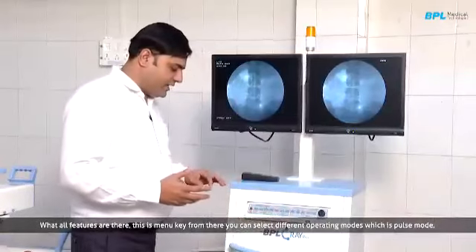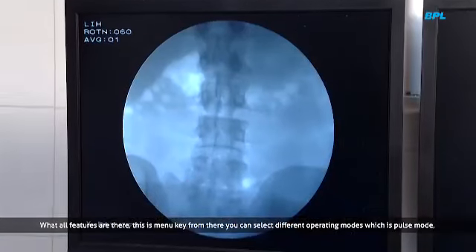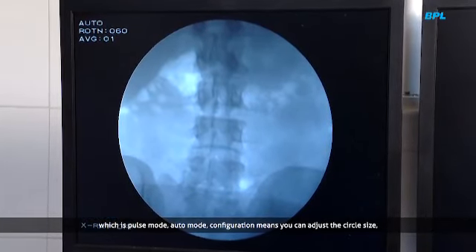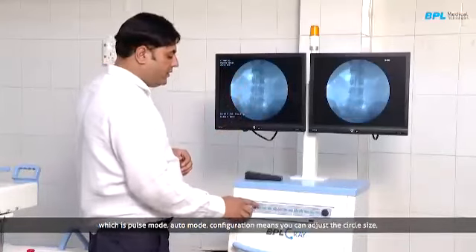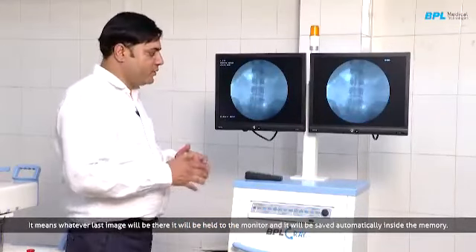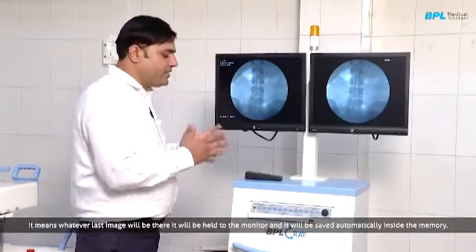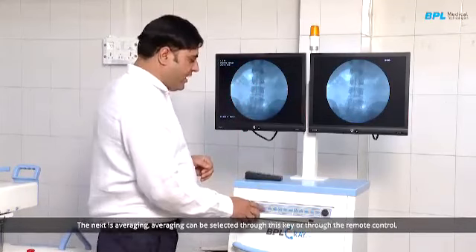So what all features are there? This is the menu key, and from there you can select different operating modes. So it is pulse mode now, auto mode, and configuration means you can adjust the circle size, and this is last image hold. Mostly surgeries are performed under last image hold. It means whatever last image is there, it will be held onto the monitor and it will be saved automatically inside the memory.